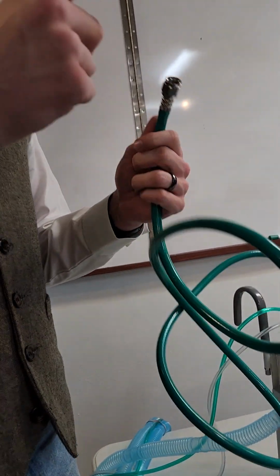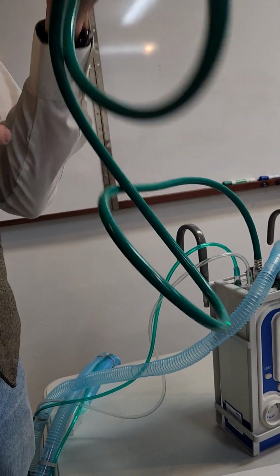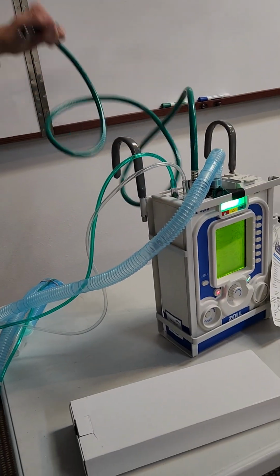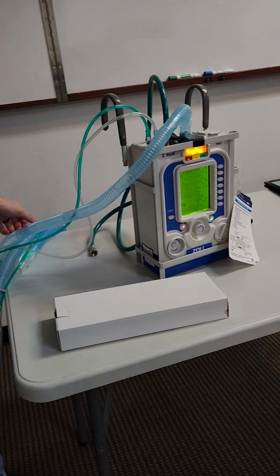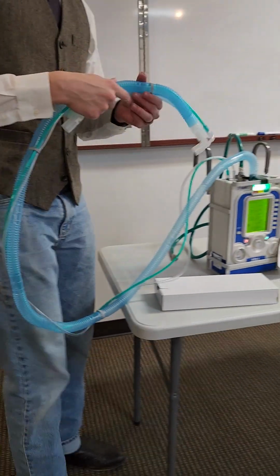Apparently there's these pigtails that we can use that just quick change it right off, and it stays attached to this, so you don't have to worry about this at all. But anyway, that's just something we're trying to move into to get that to work right. Otherwise, the circuit is, well, circuits are circuits.